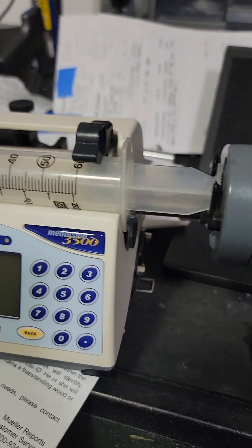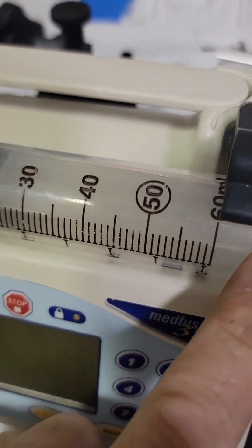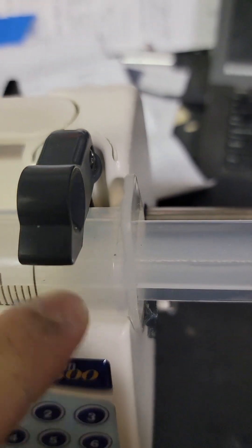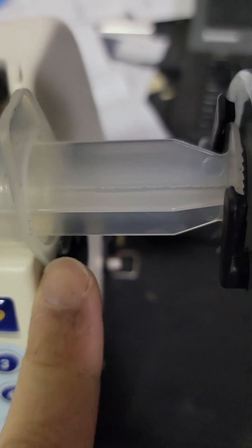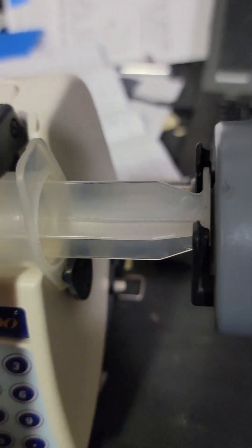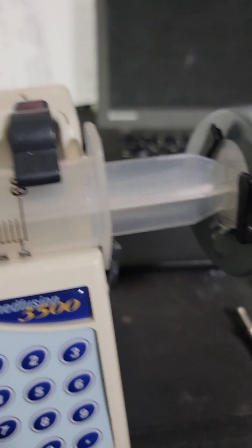When you're properly loading this, depending on the dosage for testing, you want to be able to see the numbers so you know where you're set up. Barrel clamp is on the barrel, so now we know the diameter of the unit. The flange, if you look at different ones, you'll see these are different sizes — this is part of the measurement, so it knows which syringe and manufacturer you actually have. If you select the wrong one, you will get an error.